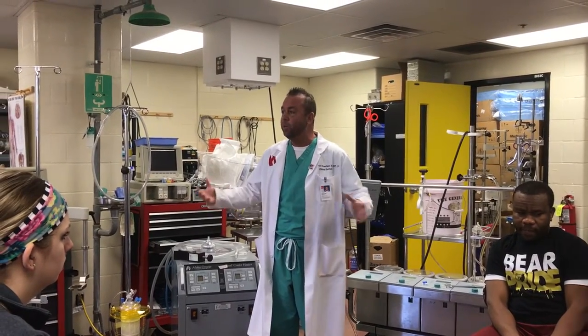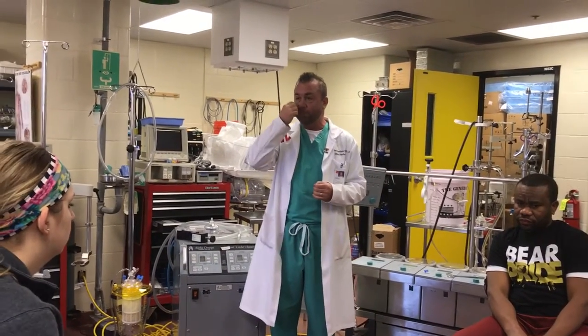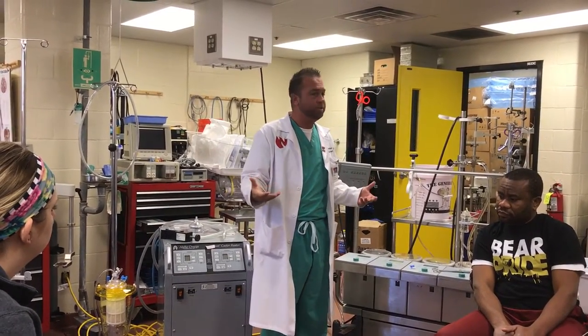Now we'll talk about the maintenance phase. Once we're on and everything's going well, what starts the maintenance phase? The surgeon will have you drop your flow, then he'll put the cross clamp on. When that cross clamp goes on, we immediately want to run antegrade cardioplegia.